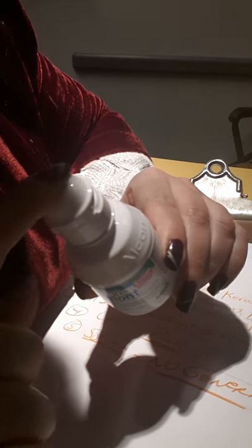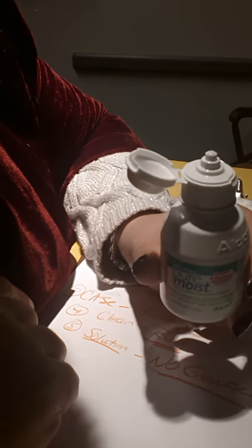You guys, bacteria are in the air, right? Viruses are in the air. They're floating around when you speak, when you breathe. You have to replace that cap because if you don't, now this is exposed all day long in your bathroom, your dirty bathroom. I hate to say it like that, but it's the truth.